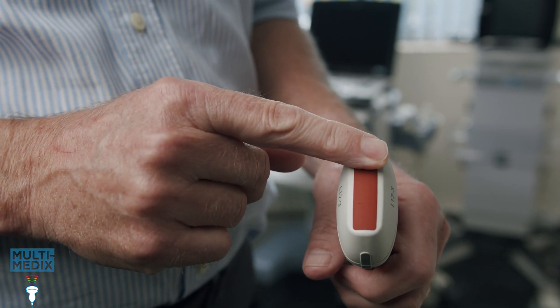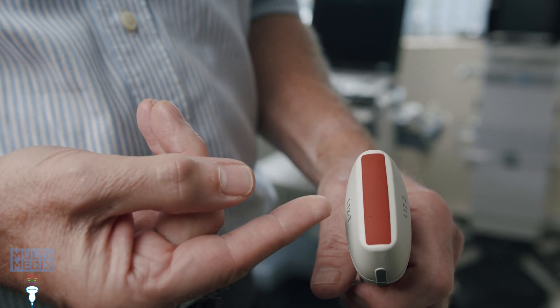Remember this pattern is created by the ultrasound bouncing back and forth in the lens, so we need the lens to be clean and dry with no gel on it. Now if the sensitivity of the scanner or the probe changes, we might expect the number of reverberations to change, so maybe the weaker reverberations will disappear. Something to bear in mind is that the lens is affected by temperature, so you might see some variation from one occasion to another, but this will be accounted for by tolerances set on the test results.